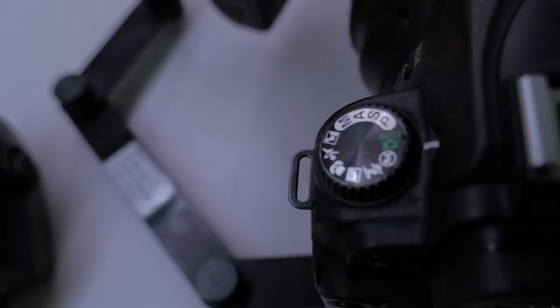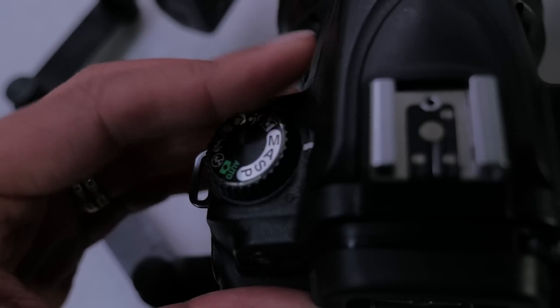To summarise: keep the ISO low at 100–200; keep the shutter speed fast enough to freeze time — around 1/200th of a second; keep the aperture smallish for depth of focus front to back — f/22 for SLRs, or 8–11 for mirrorless cameras; and use the flash on manual for a consistent amount of light. That means setting the camera fully on manual for consistent dental photography.